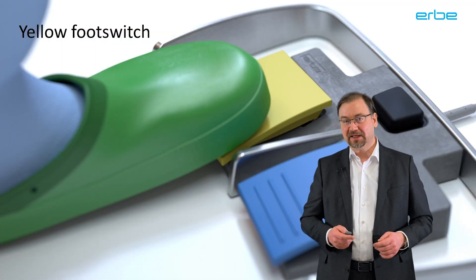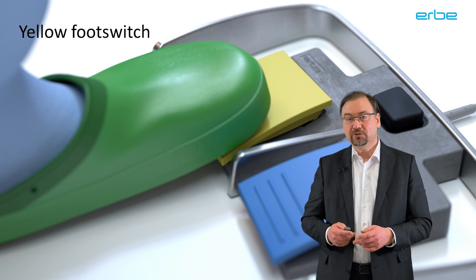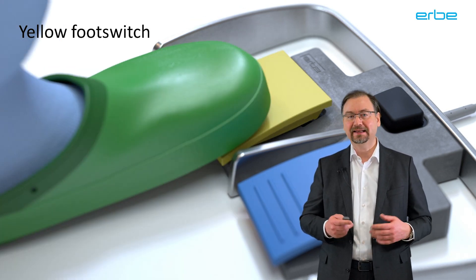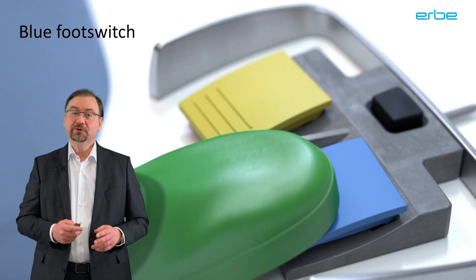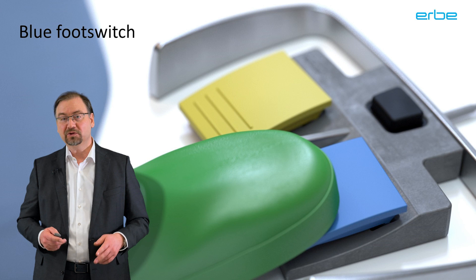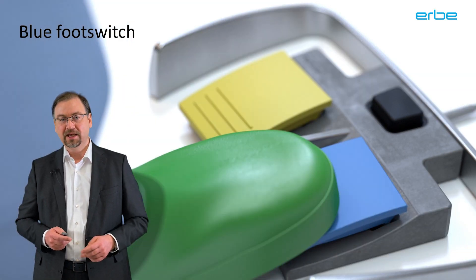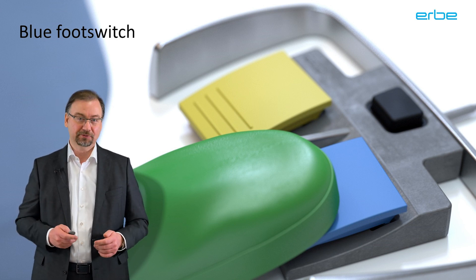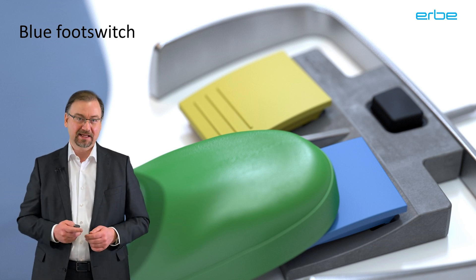One of the difficulties with endoscopic applications is the risk of perforation if the cut becomes too deep or too sharp. Therefore, when you use the yellow footswitch for cutting, you will usually want to tap it only very shortly. But sometimes the cutting effect can be delayed, making it a struggle to achieve the appropriate incision without too much thermal damage. The blue footswitch activates the selected coagulation mode and typically serves to treat possible bleeding. Prior to Endocut, it was quite common for users to activate the yellow and blue footswitch alternatingly as quickly as possible. Endocut not only helps to simplify this difficult procedure, but can also help to have better control than by tapping the footswitch.